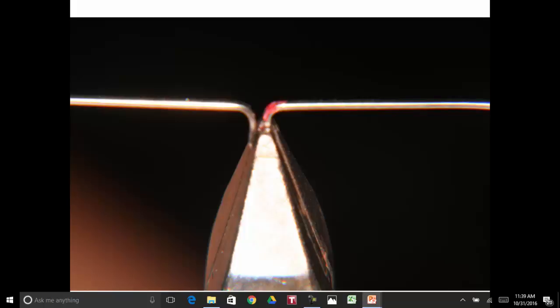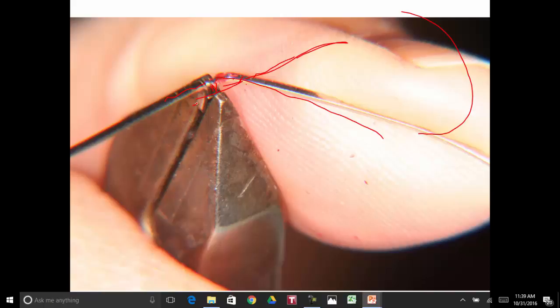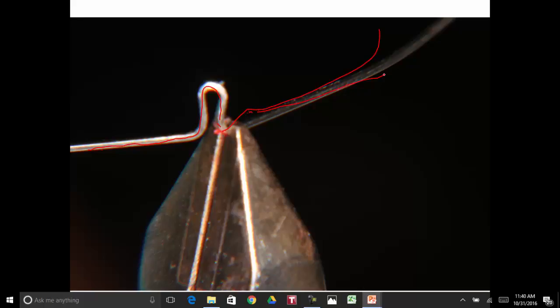Now, there's the omega. We put a bend in it to put it off to the side of the archwire. So you rotate it out. You take it, grab it right here, and bend this part. This is going to be the part that goes around, and now we're going to catch it here and bend it back like that so that the omega will be standing out away from the bicuspid teeth slightly. You catch it out. You've taken the omega up here, bent this part out, and now it's going around like that. Now we're going to catch it over here and bend this back in line.